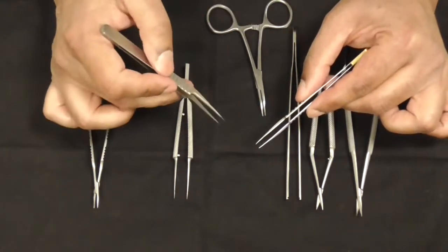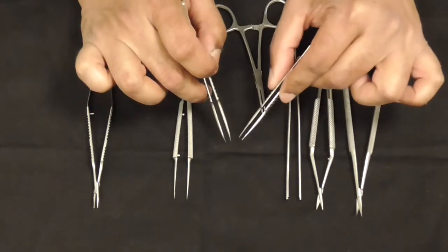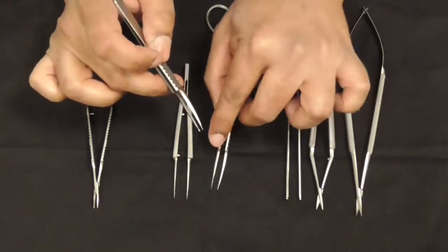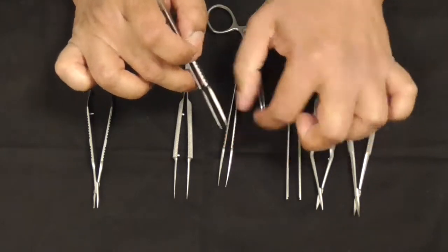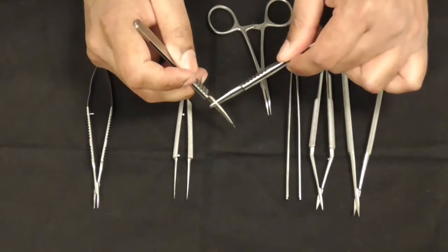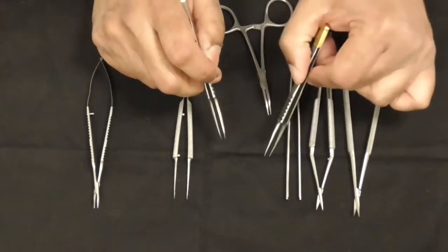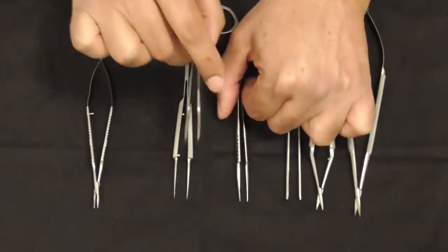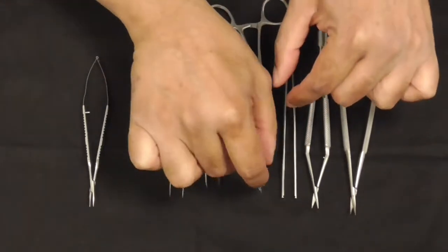You've got to use these things called 5As. The vessel tips, as you can see, are a little bit different—they're a bit rounded, so they're less damaging to the intima. To make it easy, they tend to have a curve on them to differentiate them. The 5s are sharp, and the 5As go into the artery.